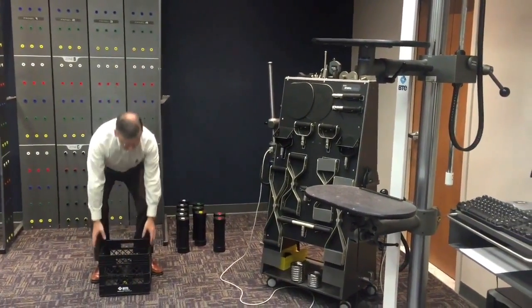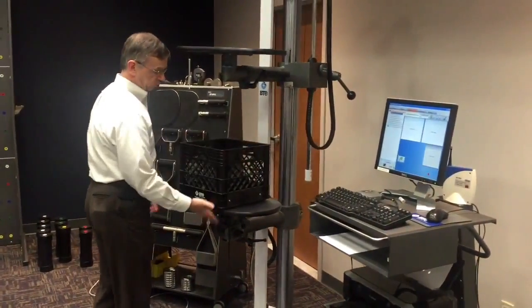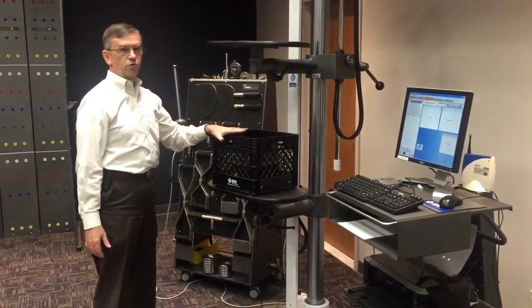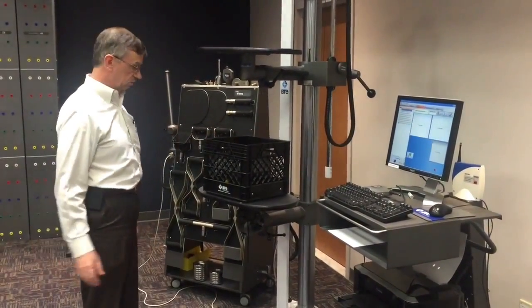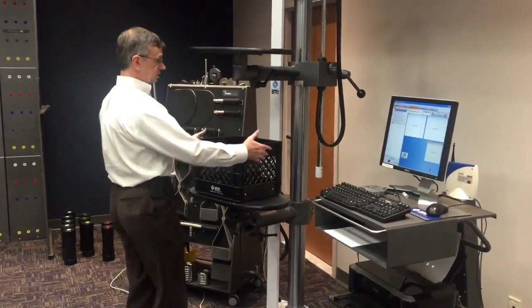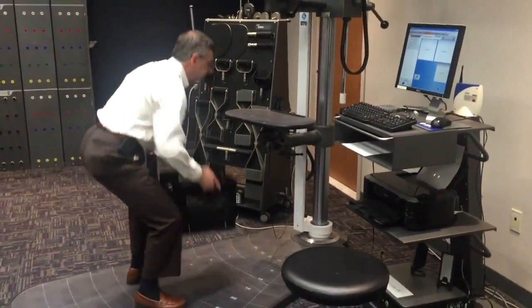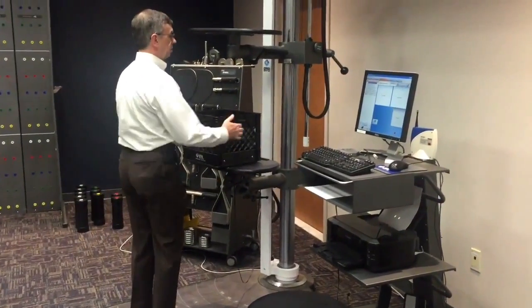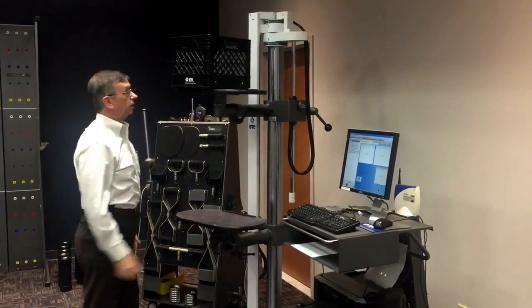That weight is placed inside. When the weight is placed on the shelf, there's a force gauge in the shelf that will record the weight, measure it into the system so that no manual entry is required. With the lifting system, the crate can go from any height — lifting from the ground to shelf height, even lifting overhead, if that's what the job requires.